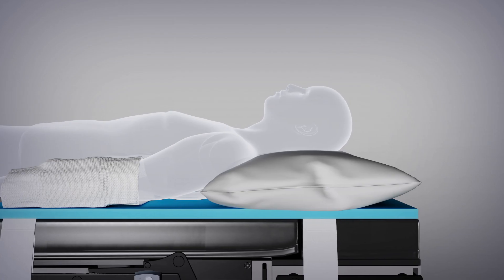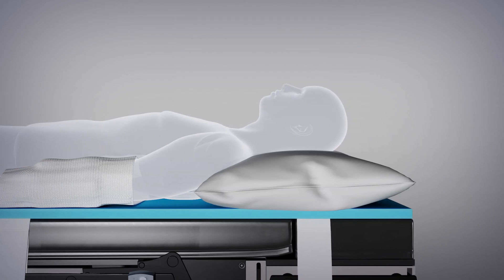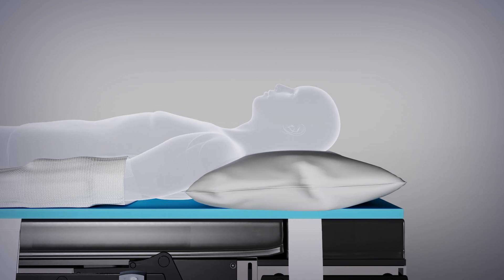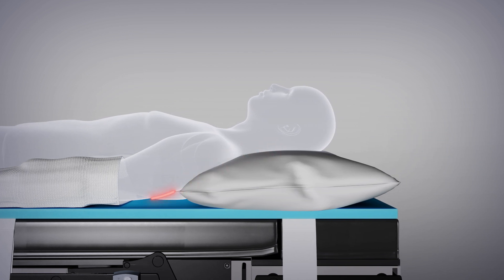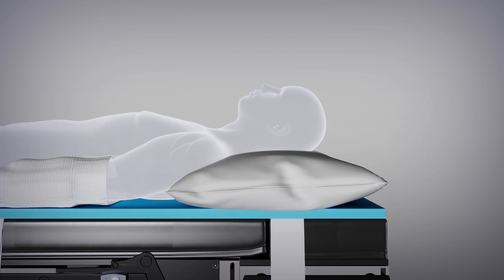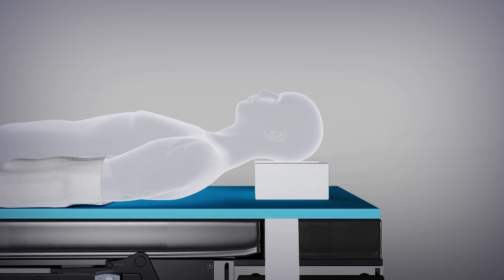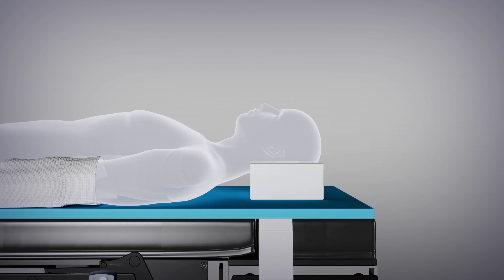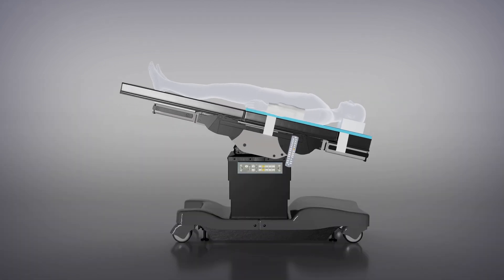Many anesthesia providers prefer to use pillows for induction of anesthesia, but please note that the patient's shoulders can often rest on the pillow and are not in direct contact with the PrimePad. If using a pillow for induction, please replace the pillow with a foam or gel head cradle or donut prior to placing the patient in Trendelenburg.